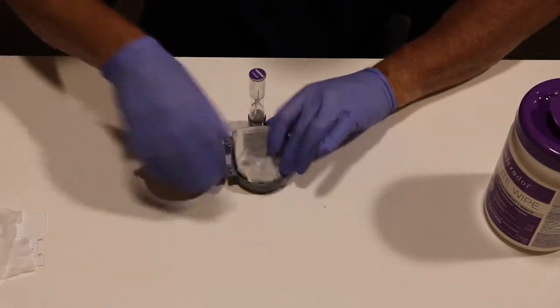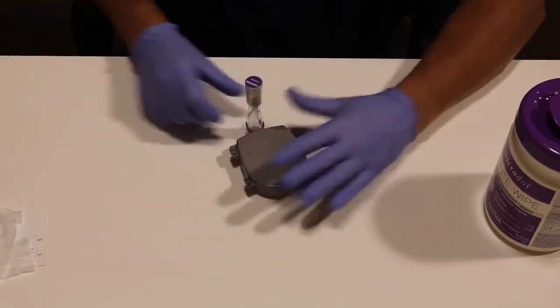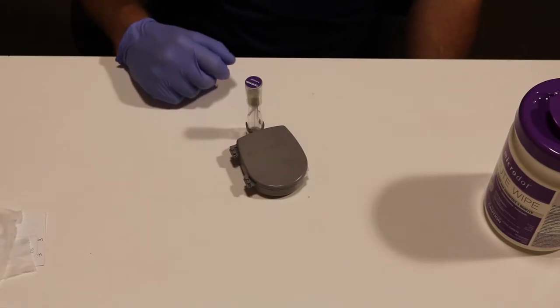I'm using the patented Microdot disinfection tray. Close the lid and flip your timer. When the sand drops through, one minute has expired. You've maintained a one-minute dwell time with the Microdot Minute Wipe and you have disinfected your meter successfully. Thank you.